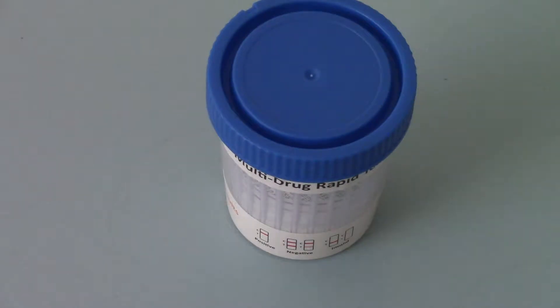So there you have it. The new 16 test. This is one of the largest cup tests available currently. It really is the behemoth of drug testing options, screening for all 16 in a single sample like this. So really you are screening for just about everything that's practically possible and common in a drug sample or screening program that you'd want to look for.